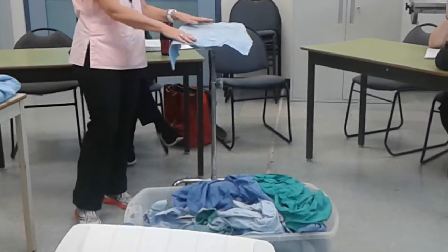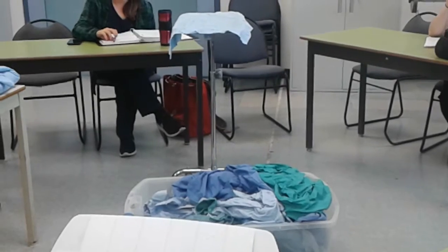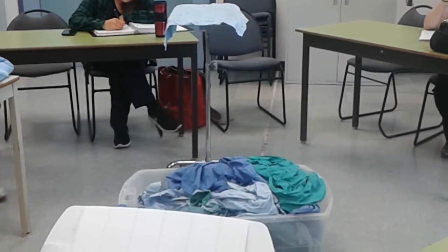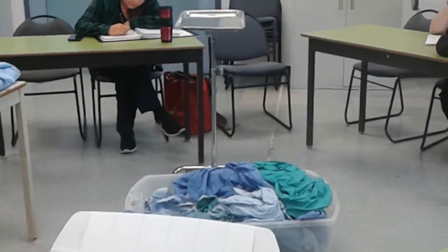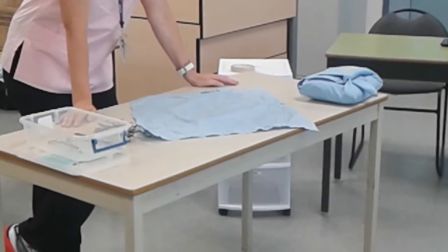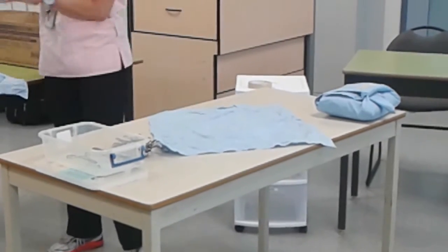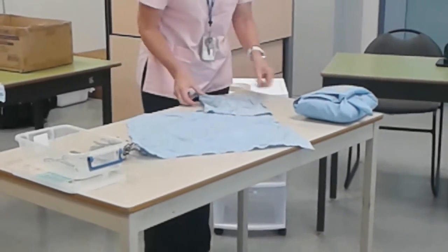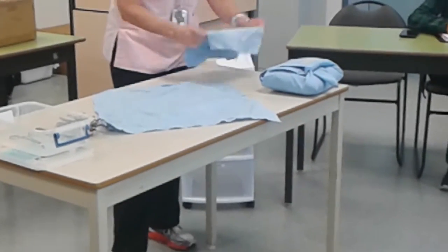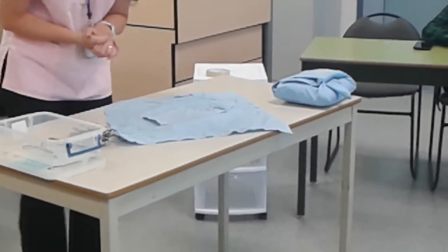The Mayo stand surface is only disinfected, not sterile. For vet tech students doing their final surgery assignment, having that exposed is something you can get docked marks for — it's important. Surgical packs are a bit tricky because instruments tend to slide when wrapping. It's not a bad idea to use a small piece of muslin, which will be available to you, to help keep the pack square.